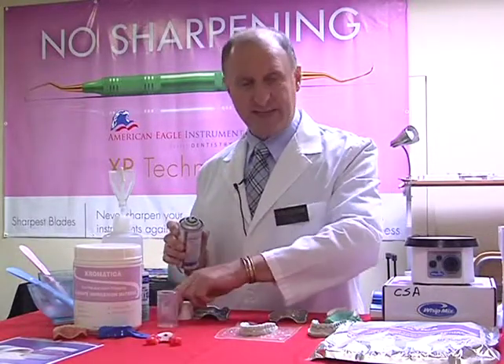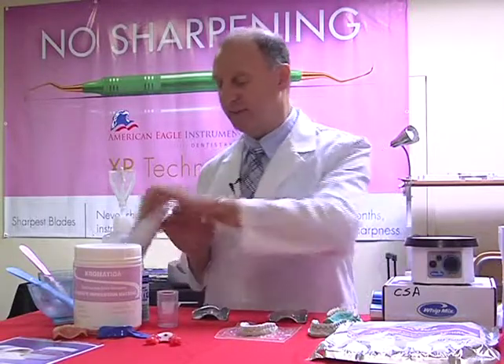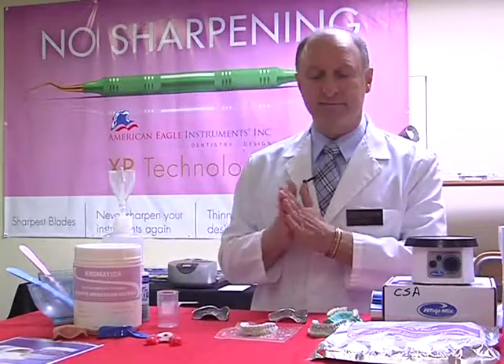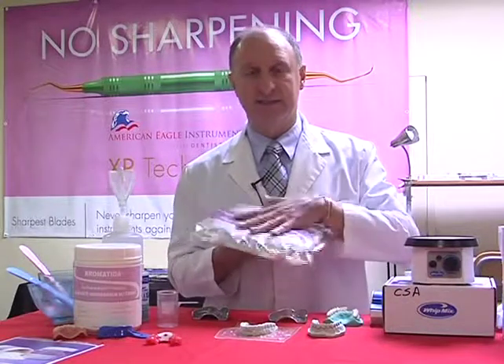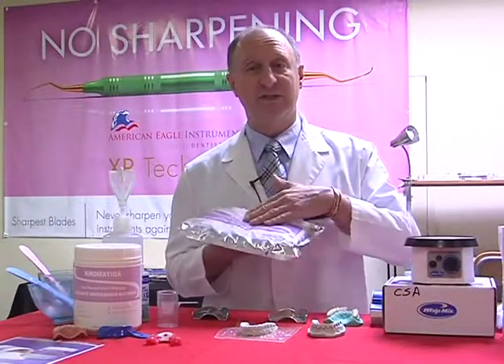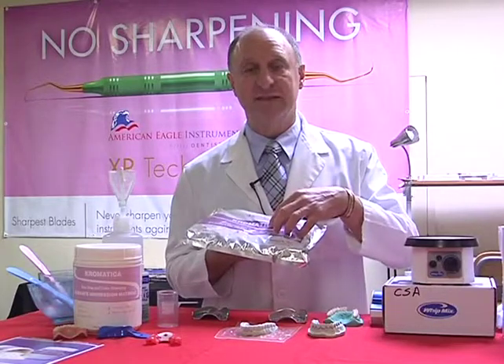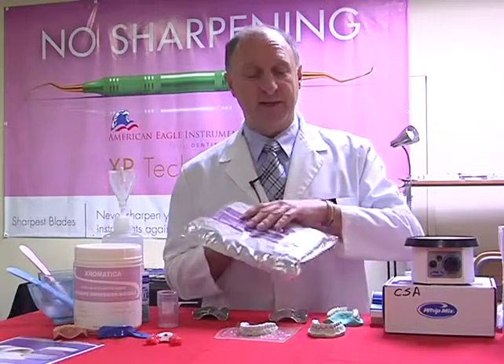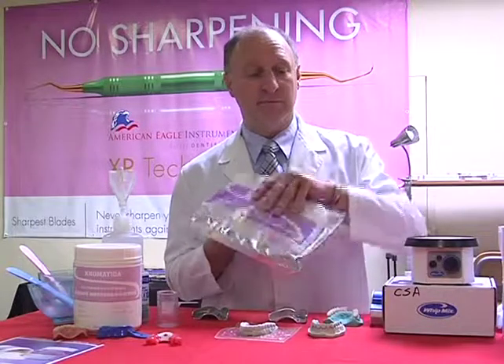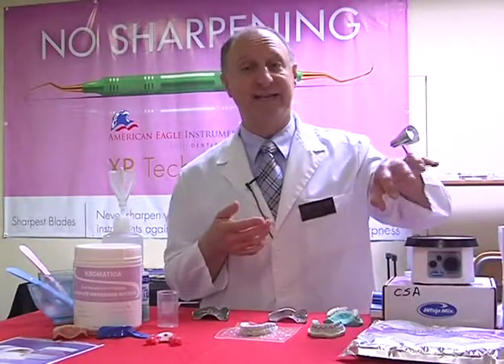Now we're going to have a look at how to mix an alginate. Let's talk a little bit about alginates. Most alginates nowadays are pre-packaged inside bags such as this. Why? Because it gives it a longer shelf life. There's a small amount of vacuum inside, and in this case we have 5 years shelf life, which is good. So it's going to keep us away from obviously any type of impurities getting inside.